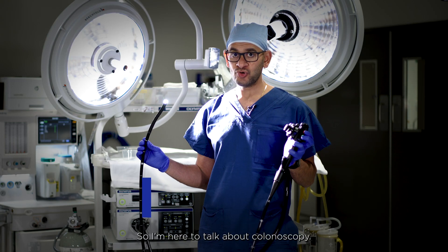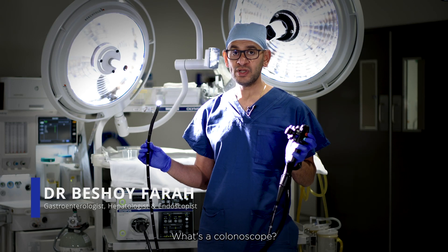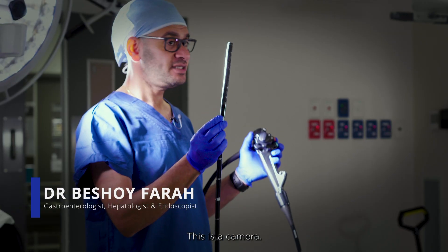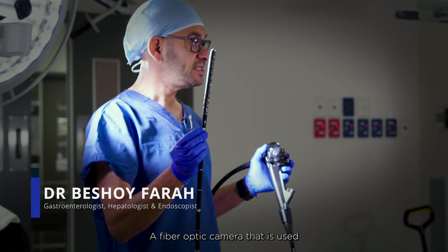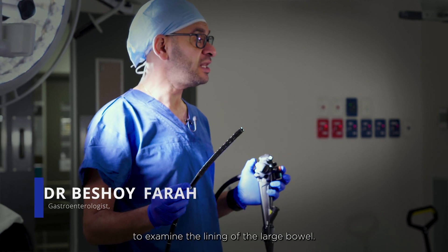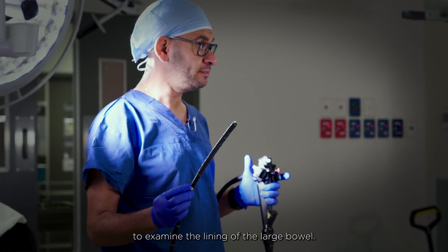I'm here to talk about colonoscopy. What's a colonoscope? This is a camera — a fiber optic camera — that is used to examine the lining of the large bowel.